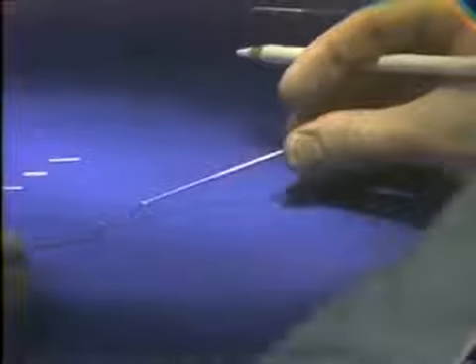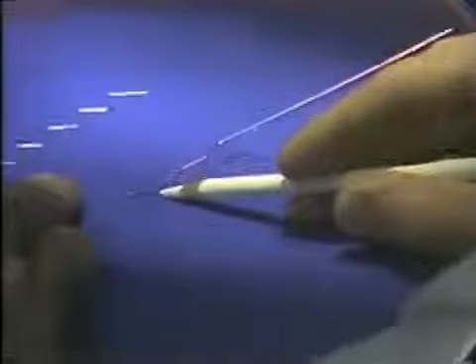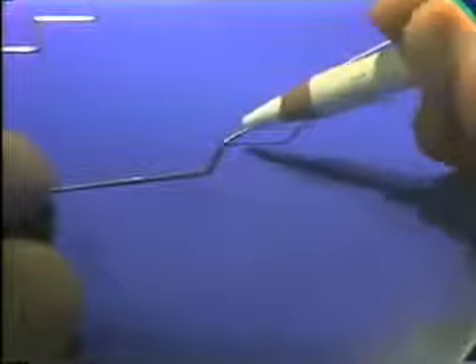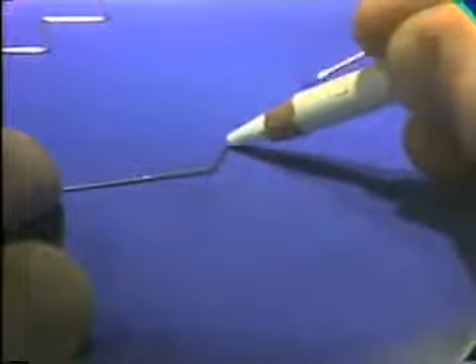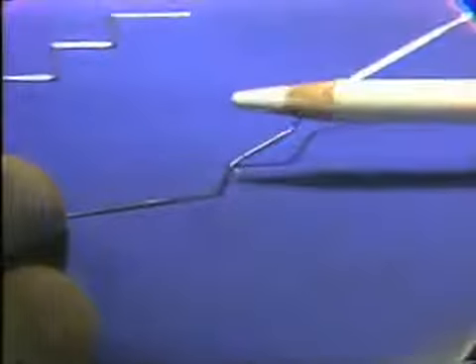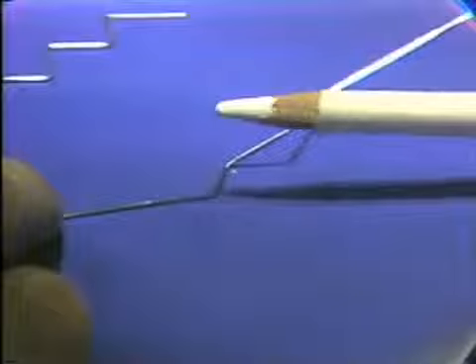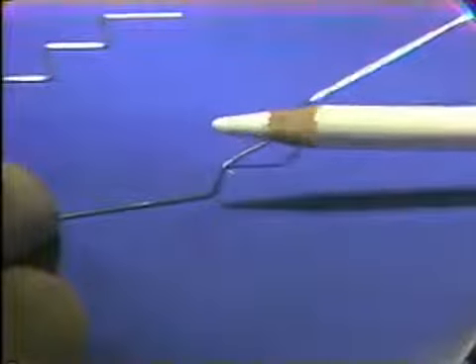In this case, the end of the wire and the first bend arm are flat on the table. You can see the point where the wire leaves the table surface. This is the point that you mark the wire with a wax marking pencil. This is a white wax china marking pencil. You can use a felt tip pen, it works just as well.